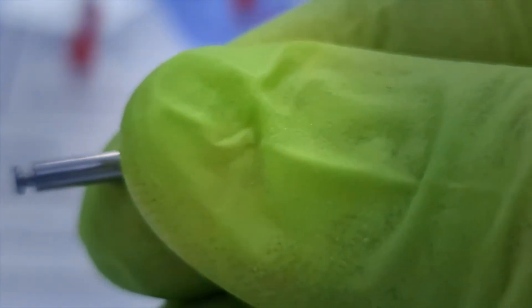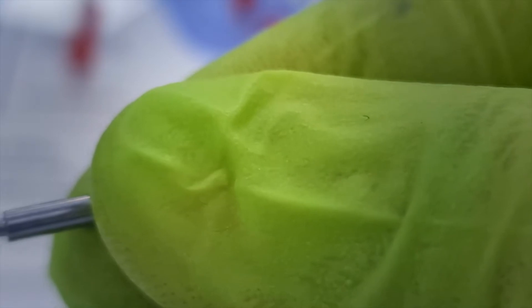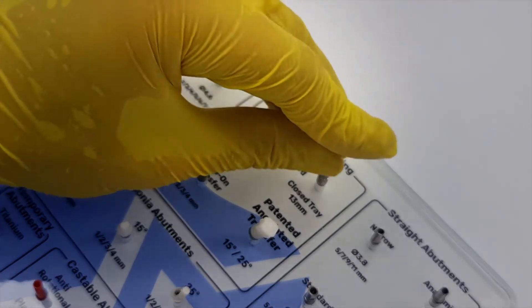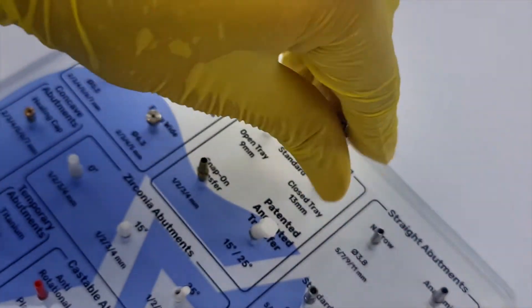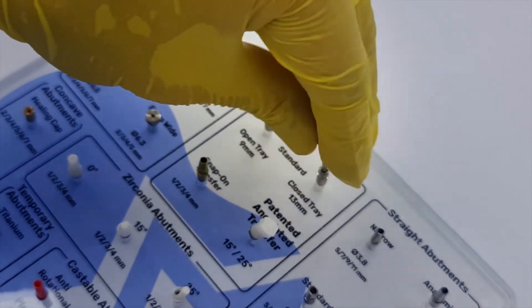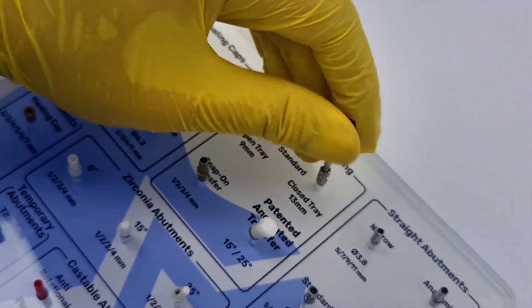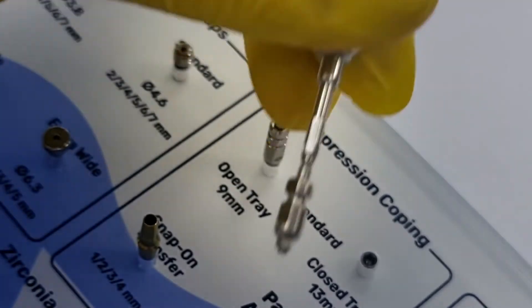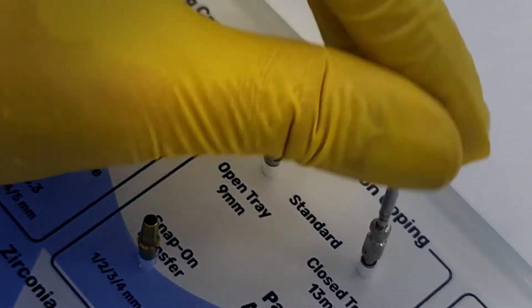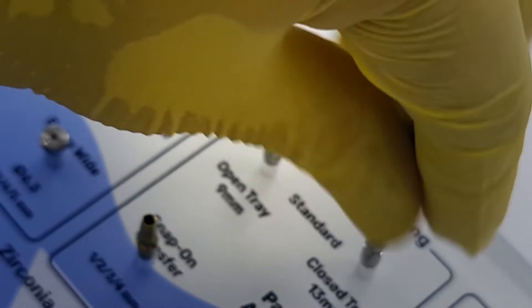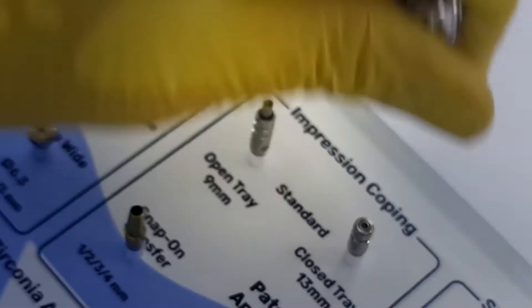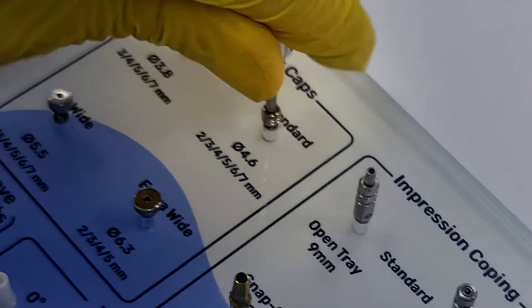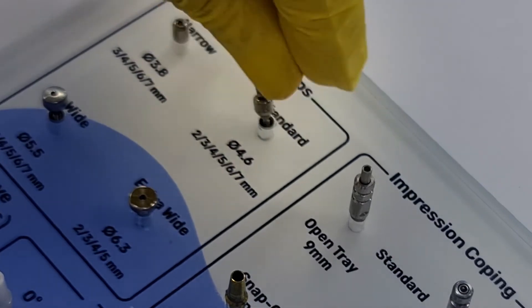In DSI we have one connection for all the prosthetics, so here you see the ultimate DSI prosthetic driver, even for very heavy parts like the impression transfer. Because of the special construction, very strong grip is achieved, so you will never face the situation when the part falls down into the patient mouth.